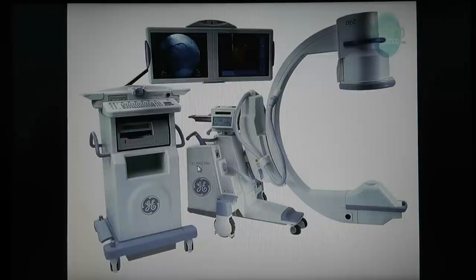During surgery we use a C-arm — an X-ray machine where the beam comes out one end and is caught by the other. It goes around the operating room table and shows us on a screen what level we're at. It's critical to be at the right level — the spine has many levels. In the old days you'd put in a plain film X-ray and wait for the film to develop. Now you shoot right through it and see exactly where you are.